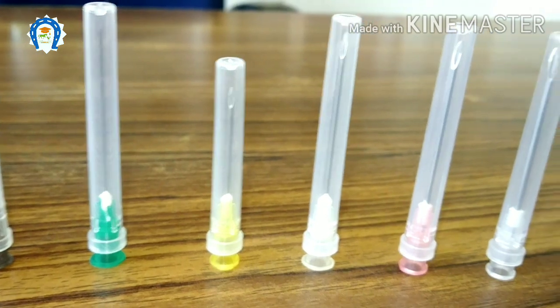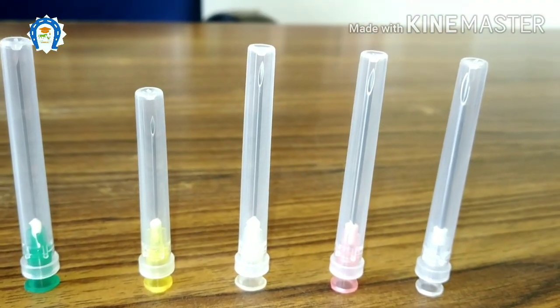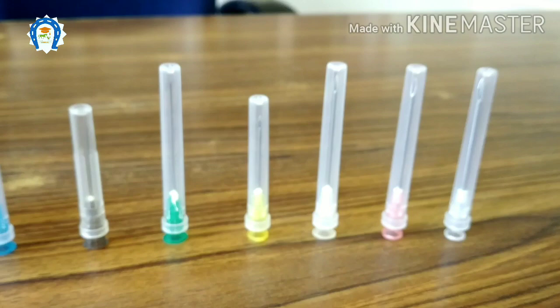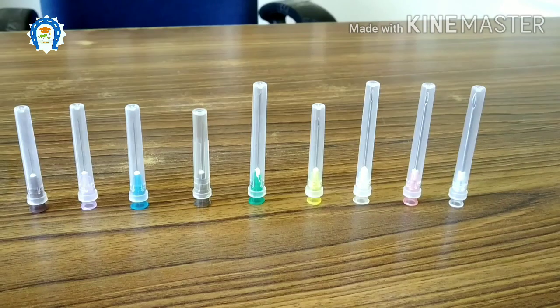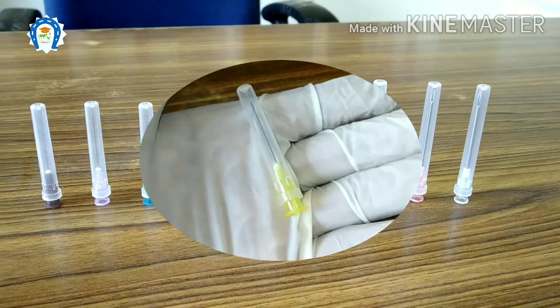Each size needle has its own color. That means a particular size needle will be in a particular color. That will not change. For example, if you take a 20 gauge needle, that will be only in yellow color.